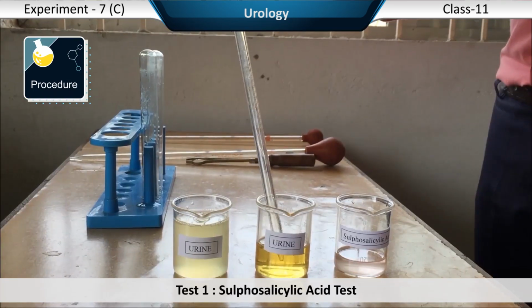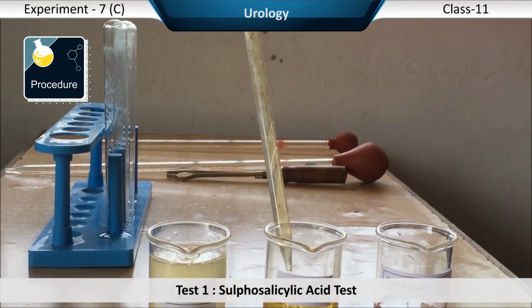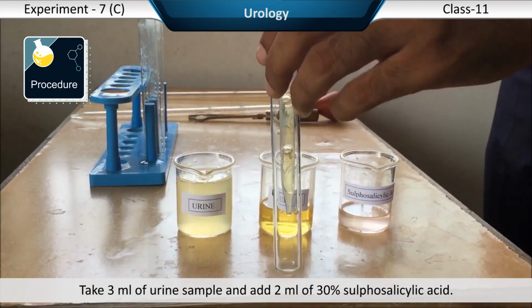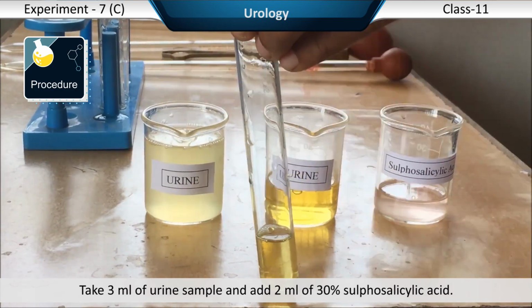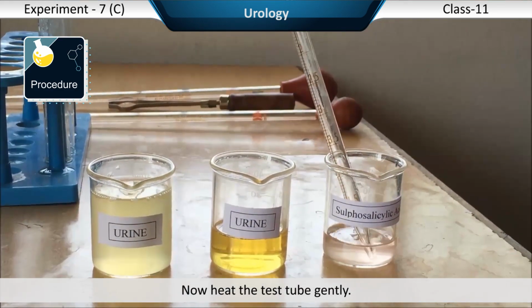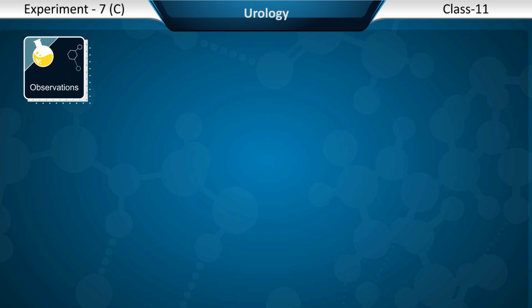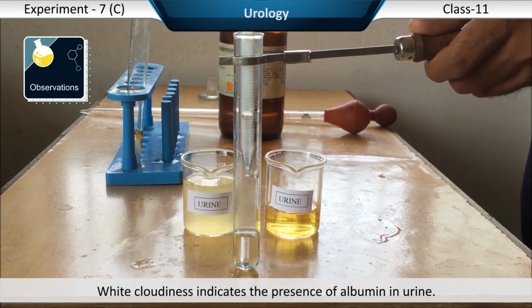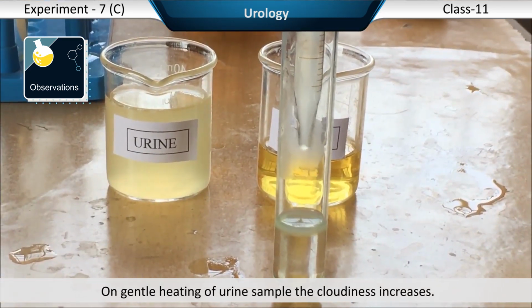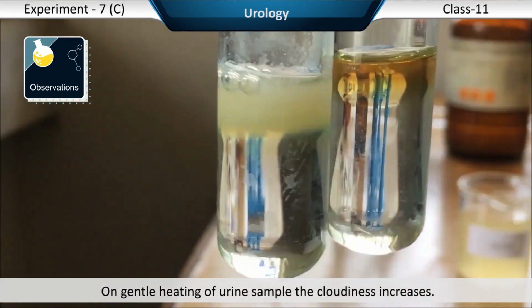Procedure. Test 1. Sulfosalicylic acid test. Take 3 ml of urine sample and add 2 ml of 30% sulfosalicylic acid. Now heat the test tube gently. Observations. White cloudiness indicates the presence of albumin in urine. On gentle heating of urine sample, the cloudiness increases.